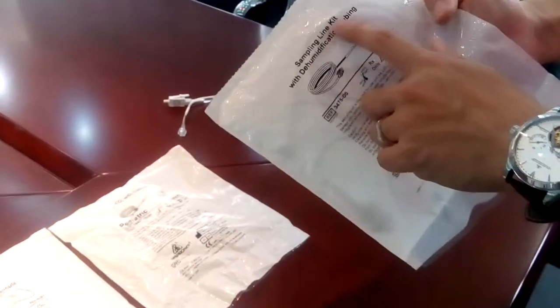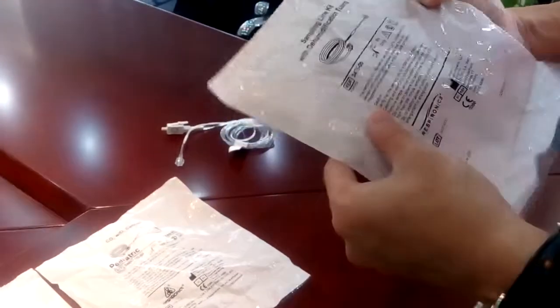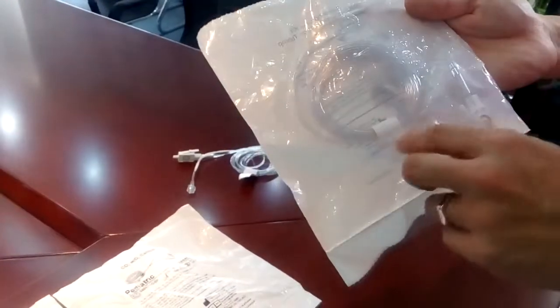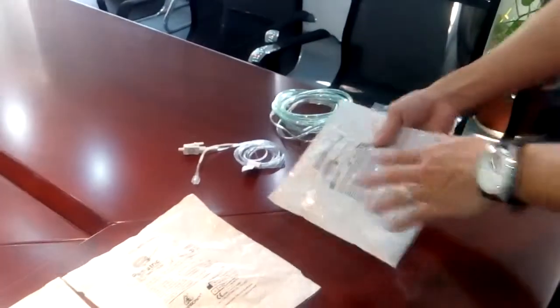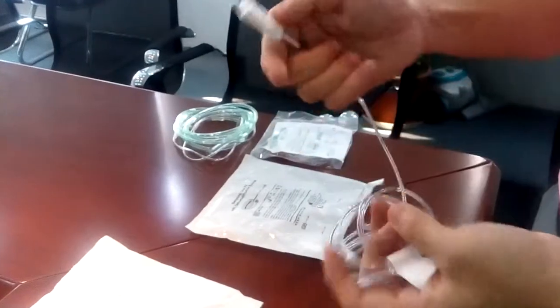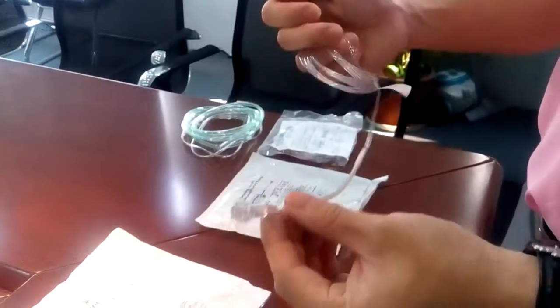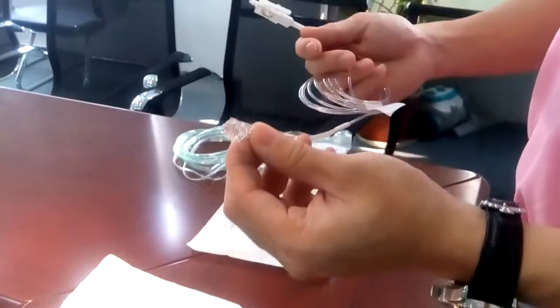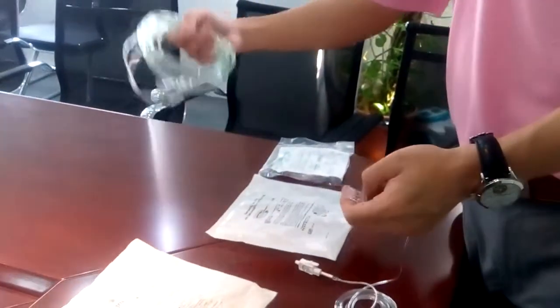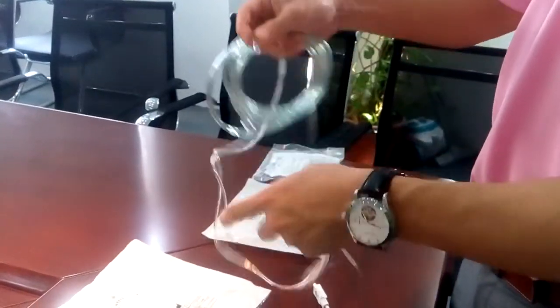This is a sampling line with dehumidification tubing. It is a little bit special — no nasal ports on the tubing itself. When you open the back, you will see the connection that goes to the CO2 acquisition module. Here is the male luer lock. What you do is use this connector and connect it to the nasal cannula with a female luer lock.